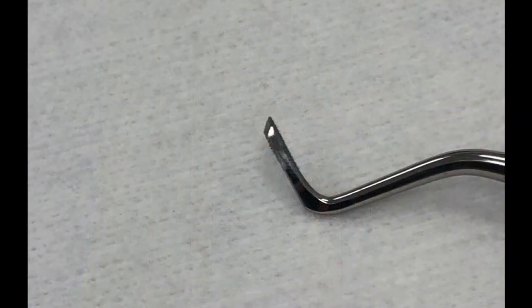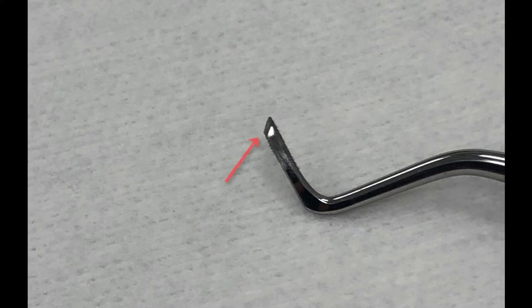A dull blade will result in the lack of ability in cutting your ivorine effectively. You will notice that under the right light, the blade will not have an even cutting tip.